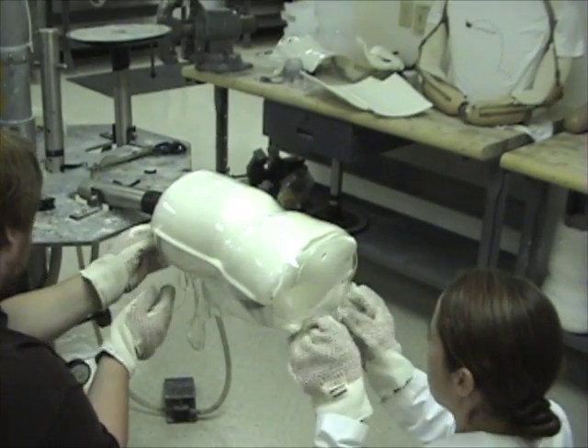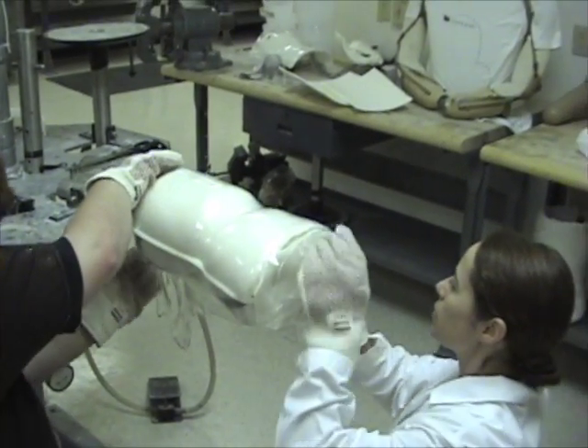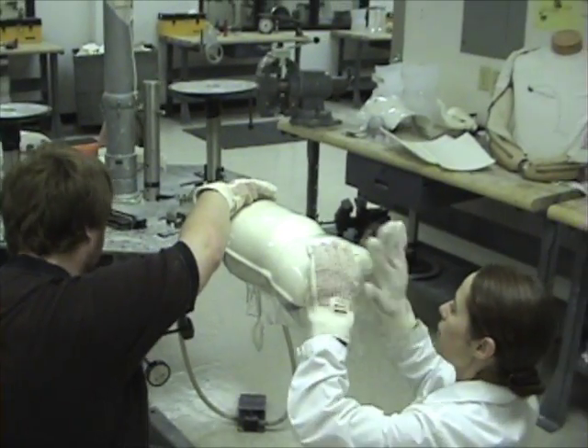You seal yours at the top, I'll get the seal to the bottom, and then hit the back.